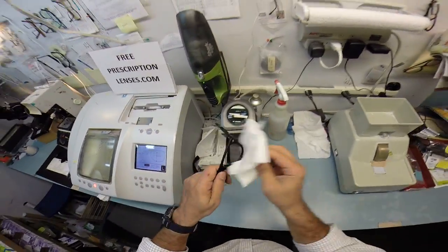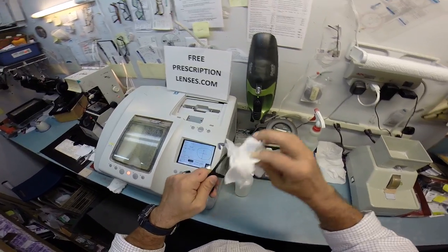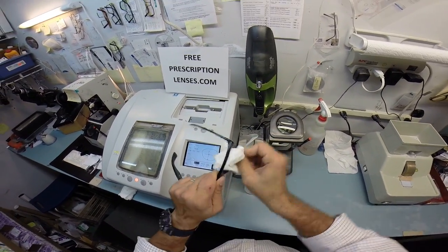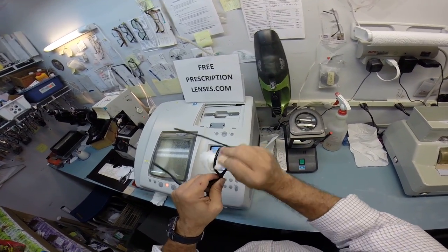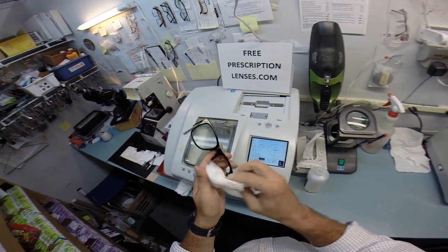Since this is used, nothing personal, but I always like to clean the interior of any frame before I trace it if it has been used because sweat, body oil, anything like that can get in there and affect the way this traces.